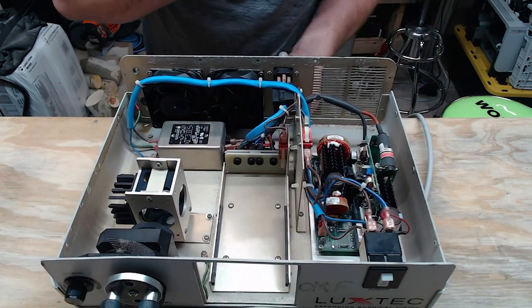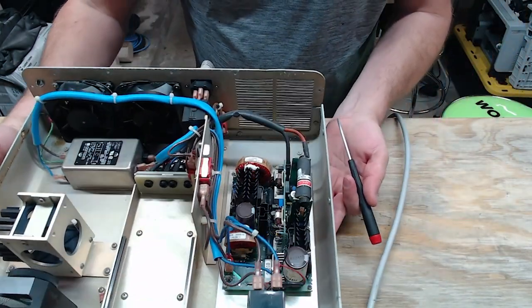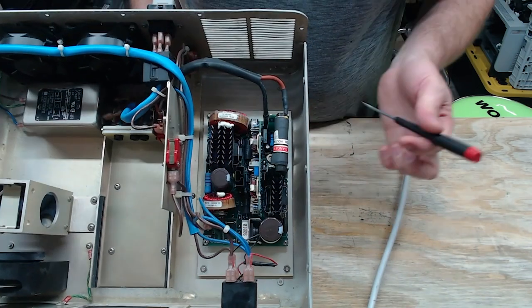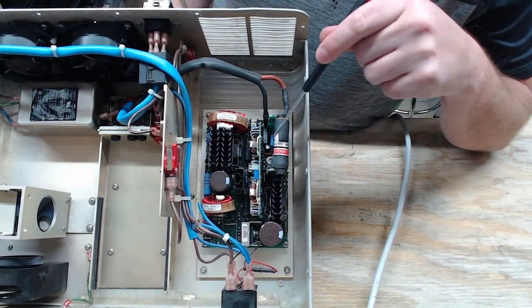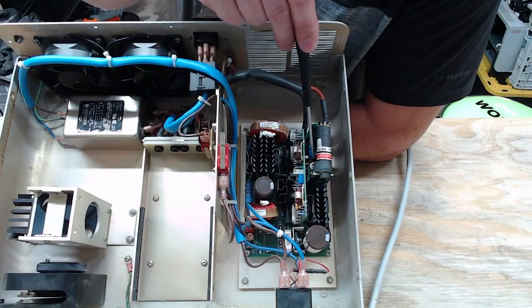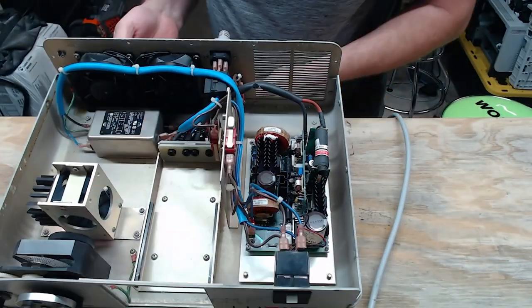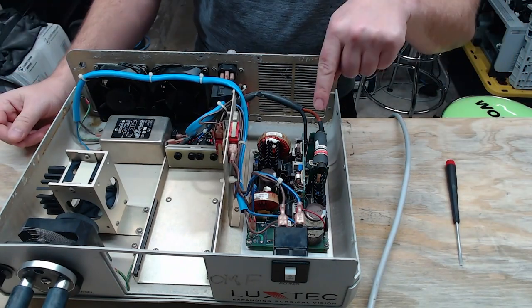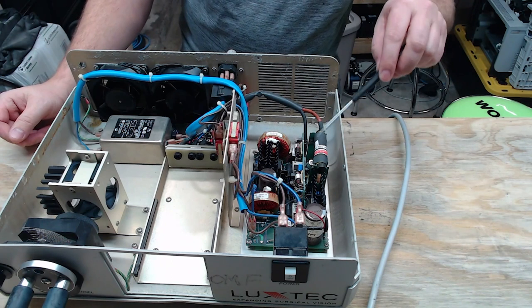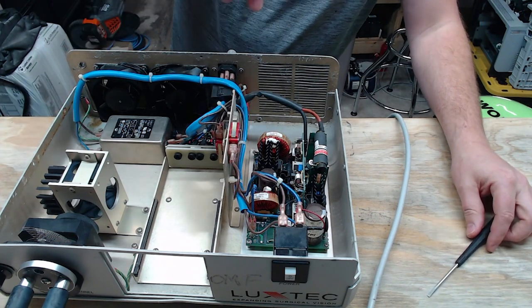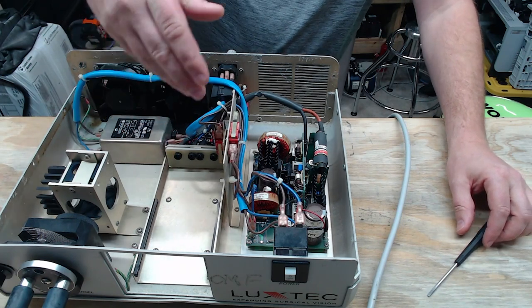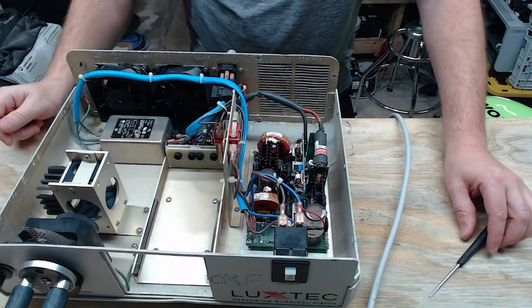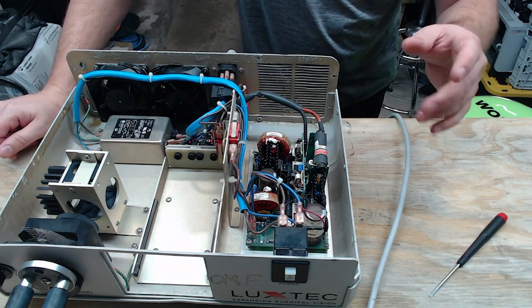Over here on the high voltage side, there's a large coil right here, but then there's a spark gapper right here. And you can see that component right here. So what happens when you go ahead and try to fire up the bulb, there's a little spark gap right here that's going to go tick, tick, tick. And what it's trying to do is it's trying to go across the gap here so that it can then kick over to low voltage. And because it hasn't exactly done that, it's going to sit there and tick.